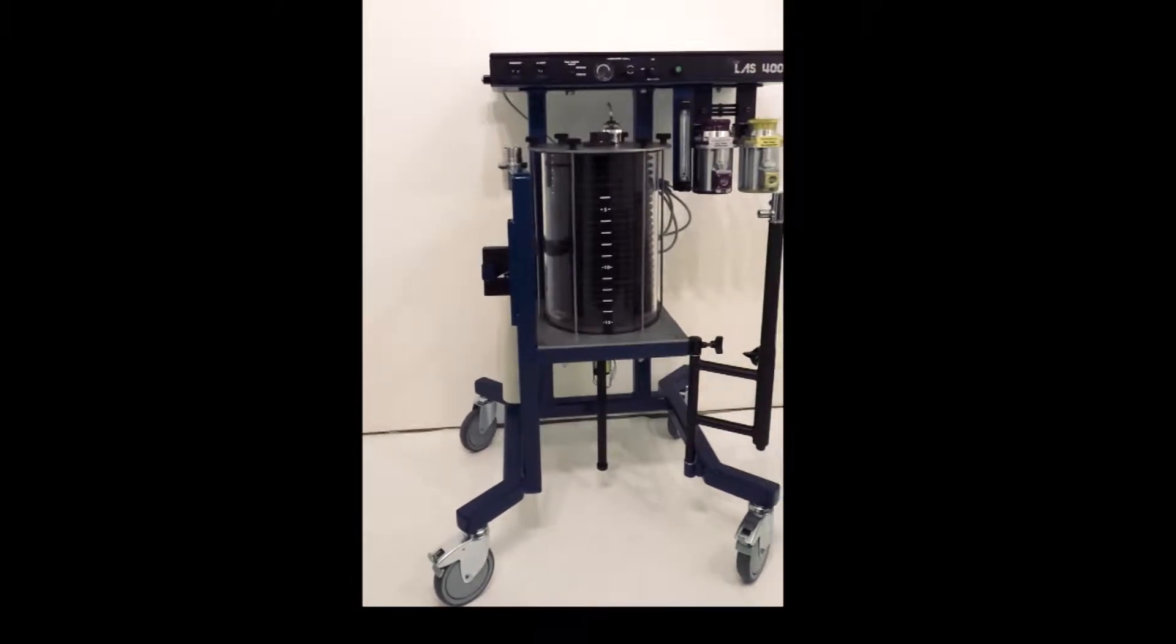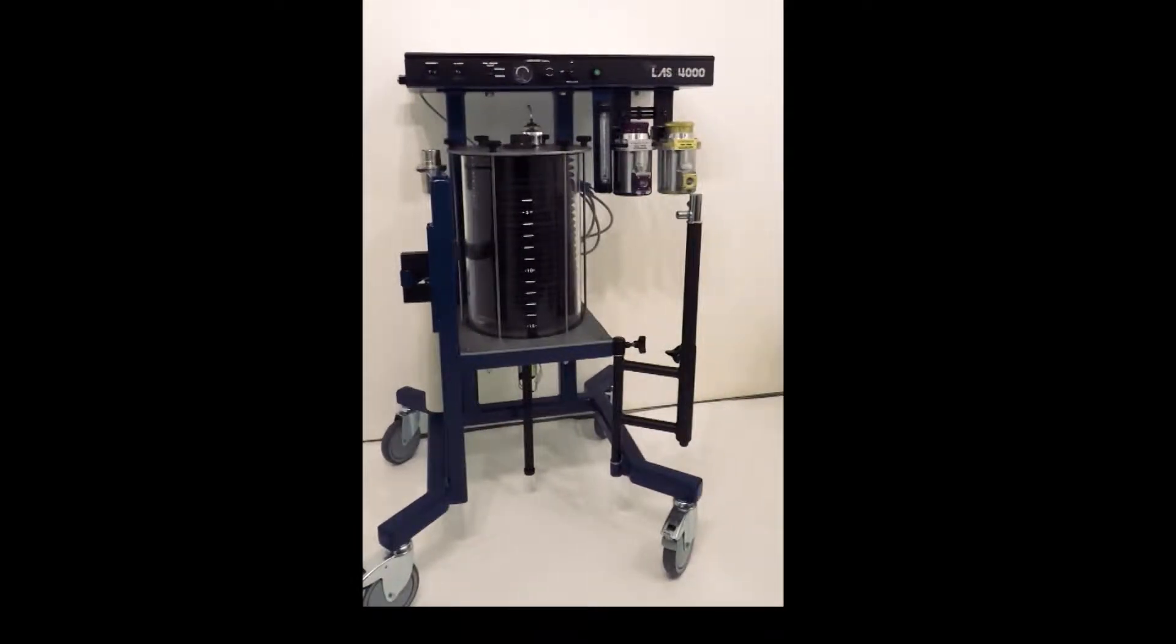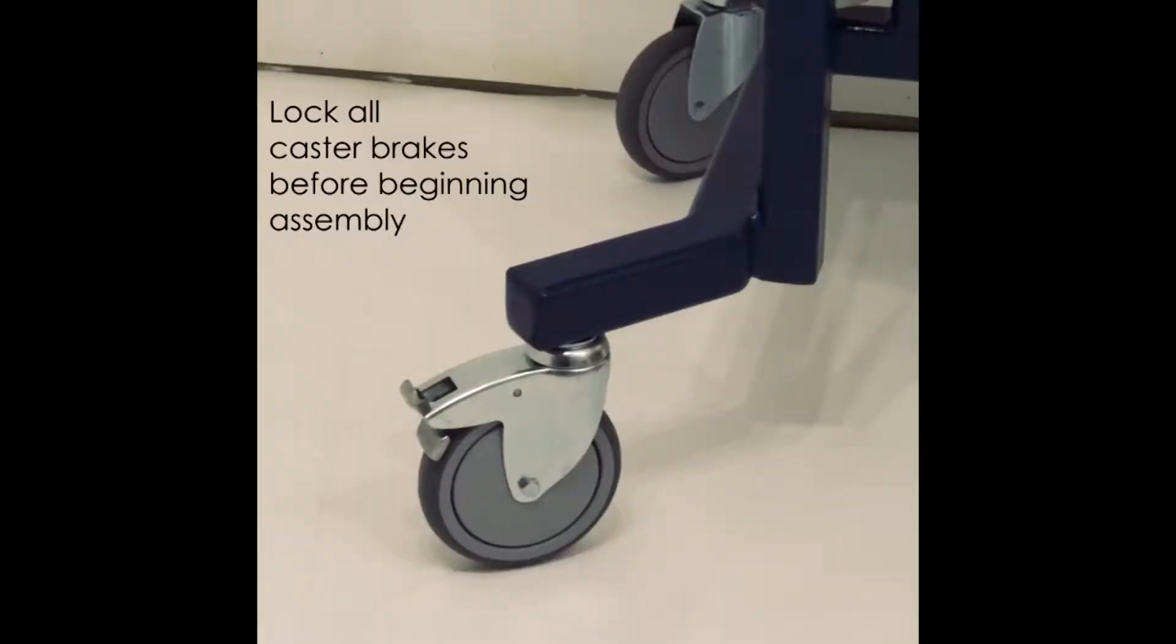The following video will help you put together your LAS 4000 anesthesia machine upon receiving it to your clinic. Please be sure before you begin that the brakes on all wheels are locked.